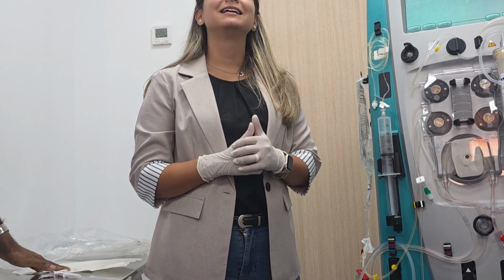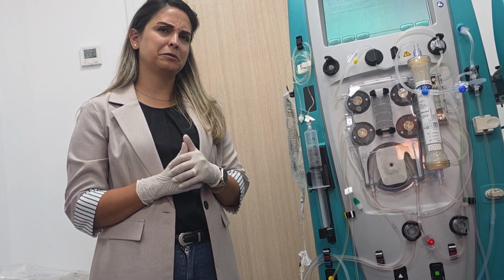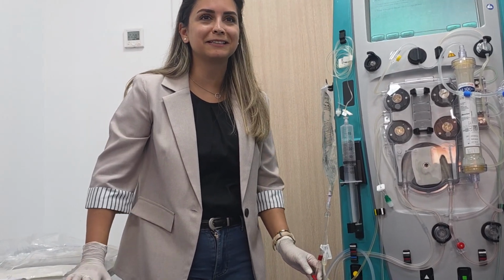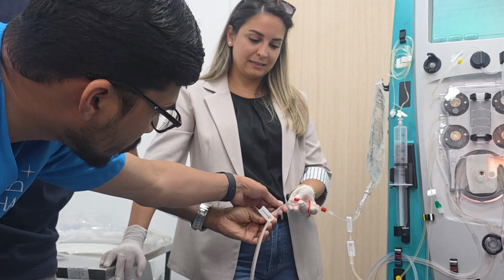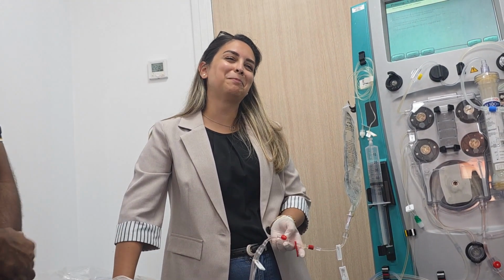No, my question is, maybe that is a one way valve. It will not go back. Otherwise, they will not put the sample port there. But they put a sample port even for normal CRRT. In normal CRRT you can take it from here, post replacement fluid.